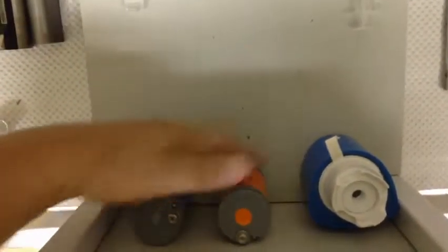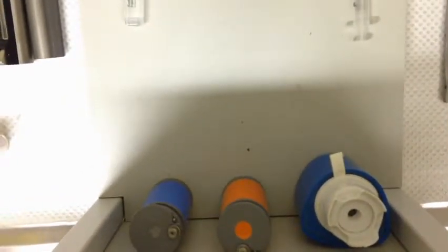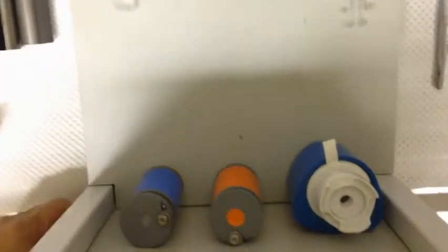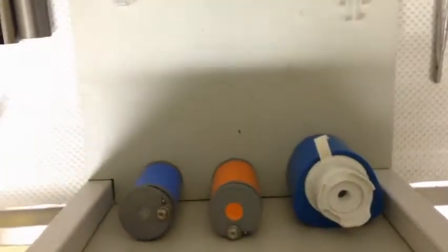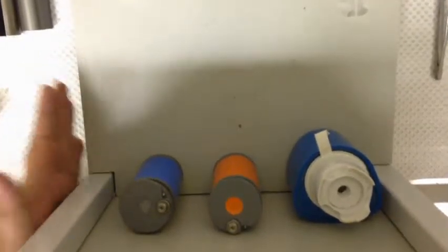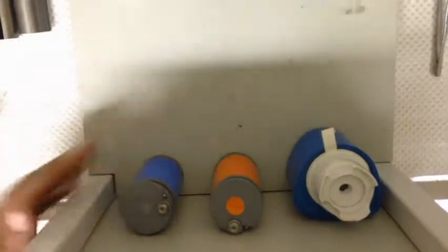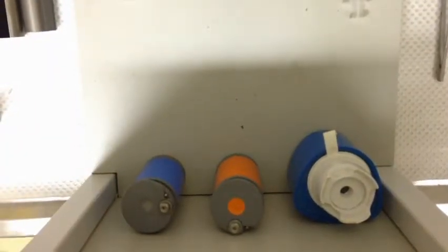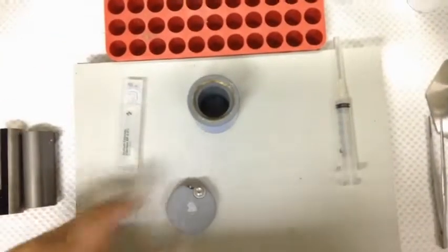The way I would normally have my lab set up — people will have these stored in a fridge or a cupboard, there's all sorts of different methods — but for this scenario what I do is I have all of my kits plugged into the back of the bench shield. If you've got wings on the side, it obviously gives you the best reduction of scatter and radiation exposure. It means that my work area out here doesn't have anything I'm not using, so all I'm going to do is pull out what I'm actually going to be using.